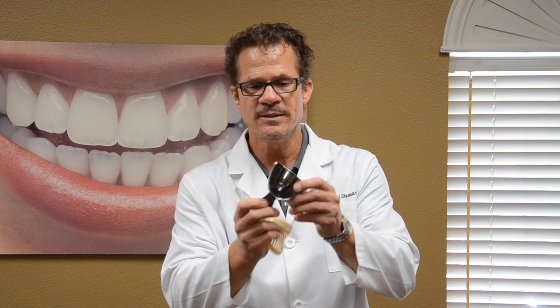So we recommend the rimlock trays — metal rimlock trays. There are no perforations, as you can see, and when it's loaded with alginate and placed into the mouth, all of the pressure is directed upwards and inwards towards the teeth. After two minutes, the alginate sets, it's removed, and we have a very accurate impression.